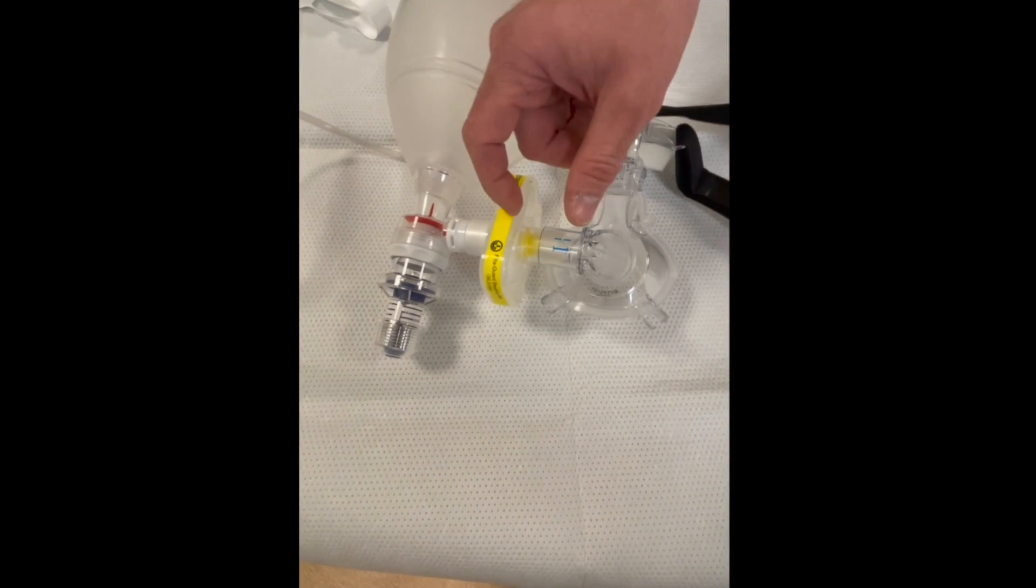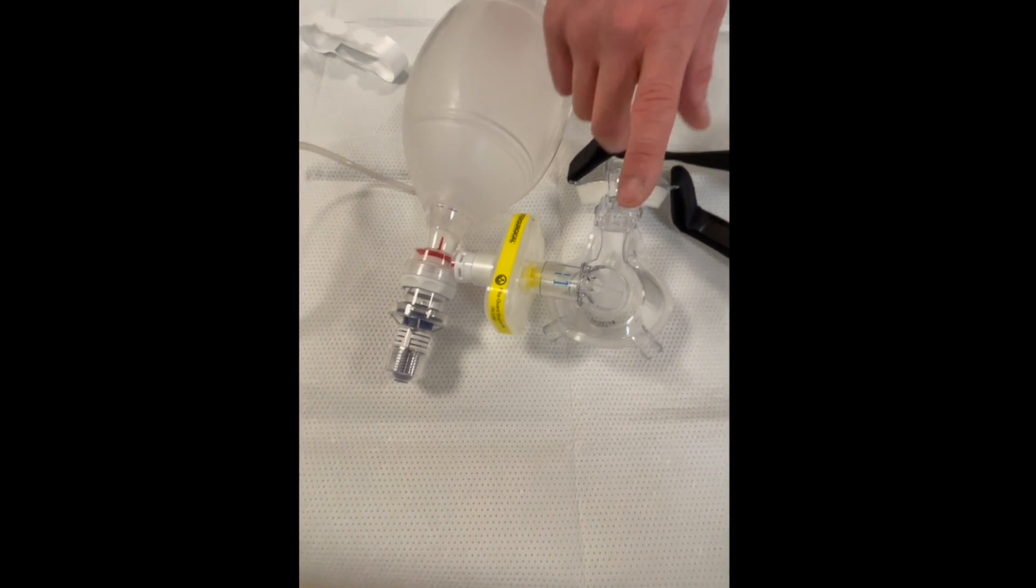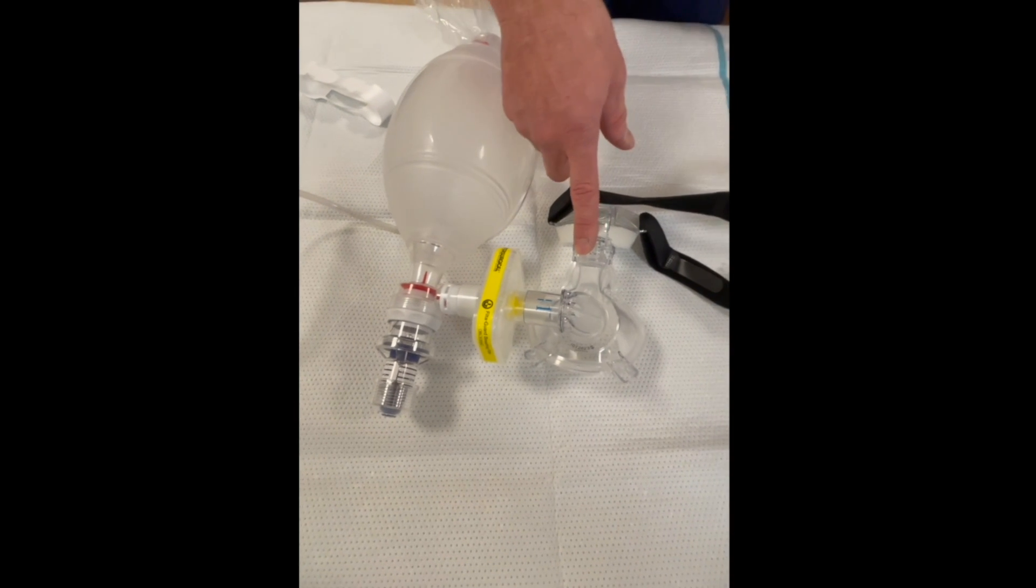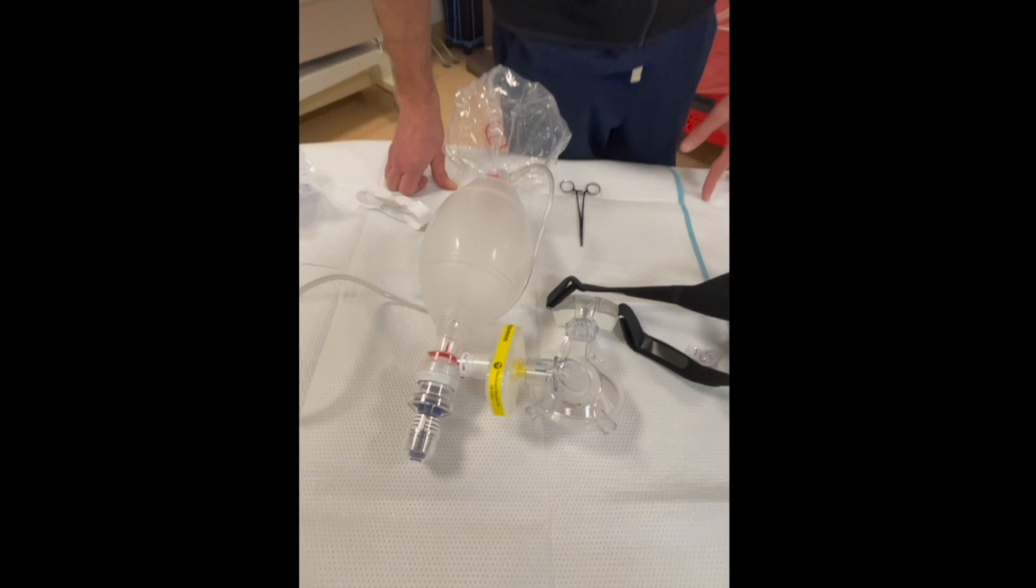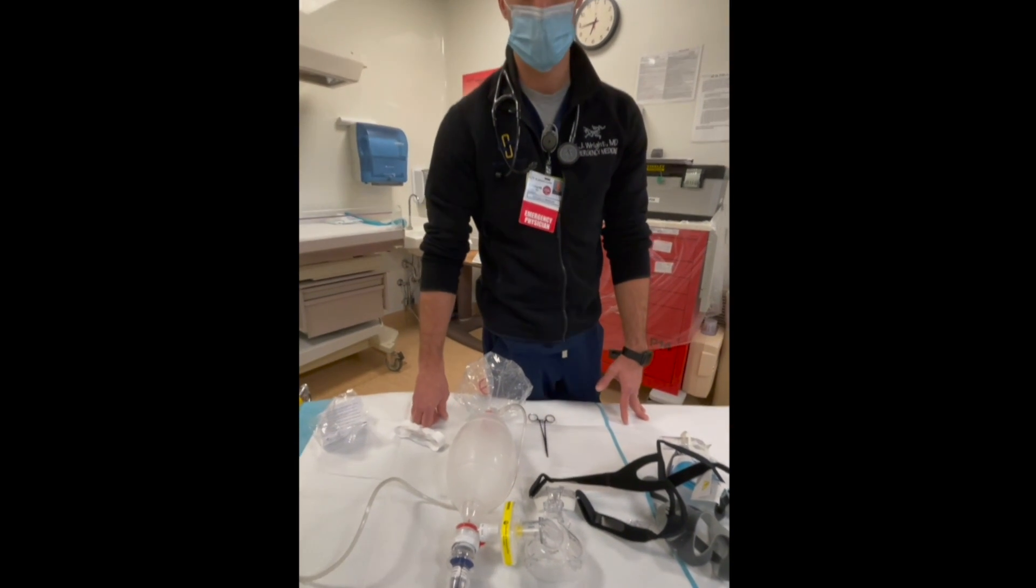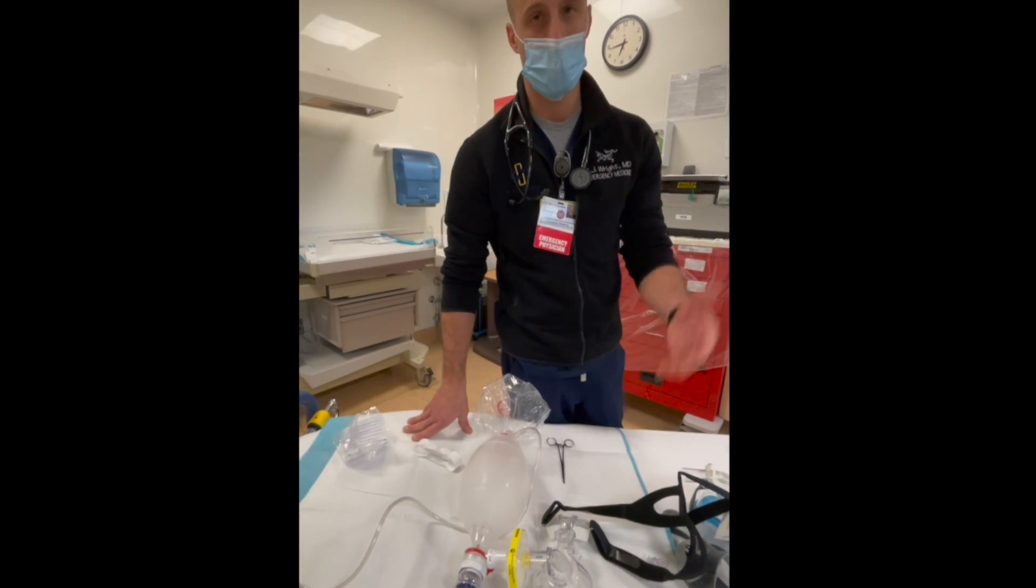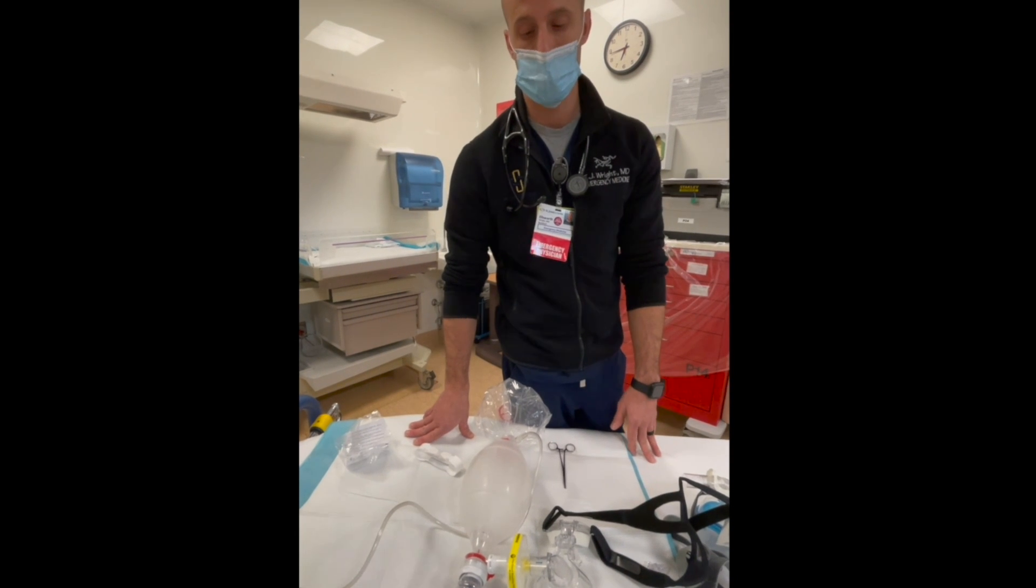A lot of times I find that with this shorter tube size we get decreased dead space and you'll have better oxygenation with the old mask. If you can go with the old mask, that's best. If you guys have any questions, reach out to Swami, the administrative staff, or Balvin. I'm sure anybody would be happy to answer questions.